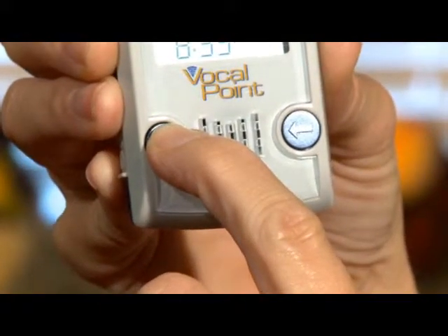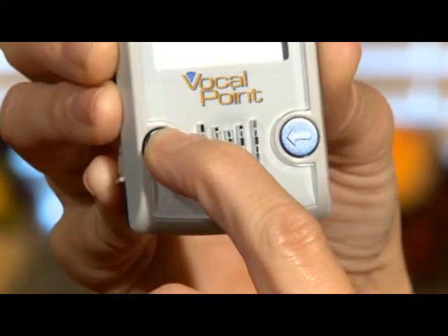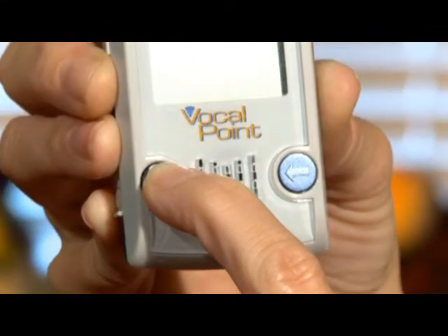To exit from the meter's memory mode, simply press and hold down the M button for several seconds until you see the meter turn off.